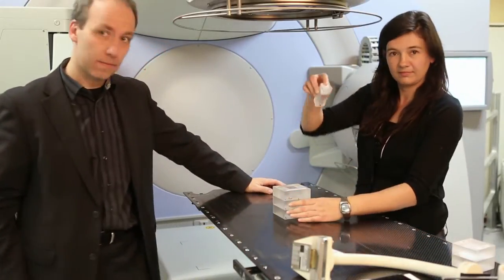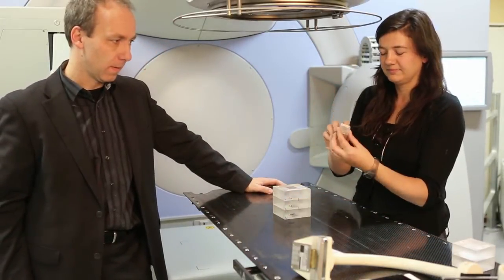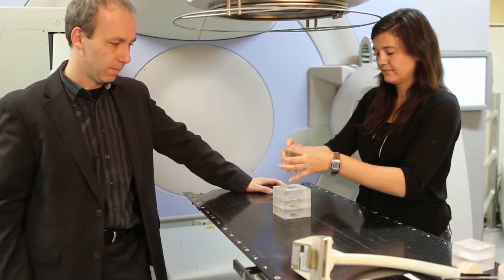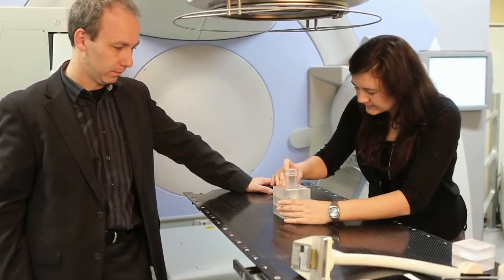The plug has a 'this side to source' label. Make sure it is facing upwards. Insert the plug into the rings; it should go in fairly easily without too much pressure.